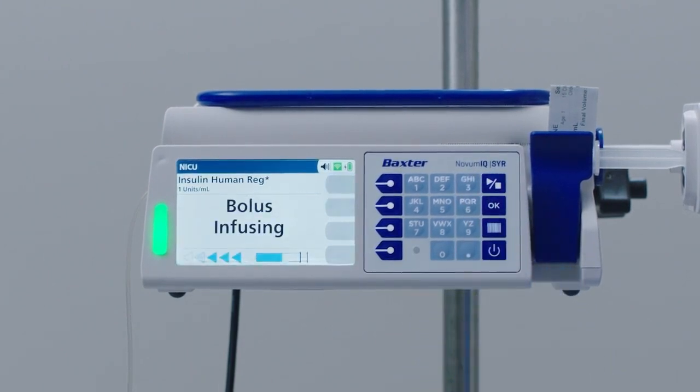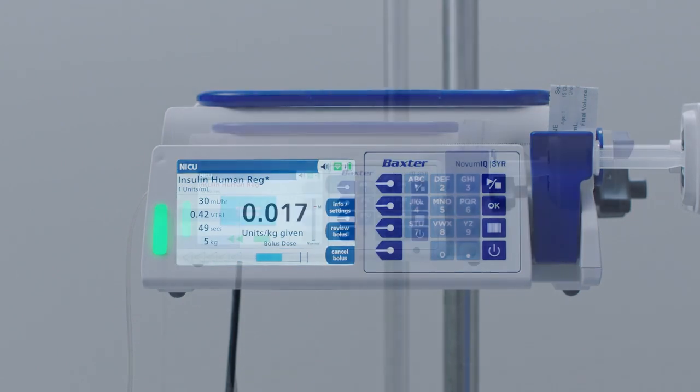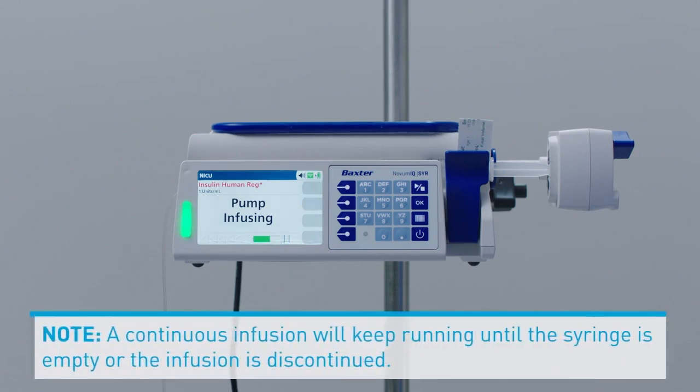The bolus screen displays the amount of bolus given. Note that, for a bolus, the run arrows are blue. When the bolus is complete, the primary infusion will begin running again. Note, a continuous infusion will keep running until the syringe is empty or the infusion is discontinued.